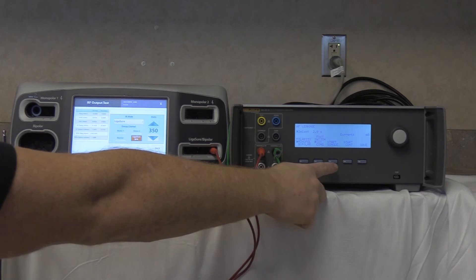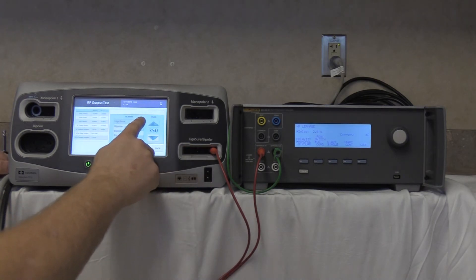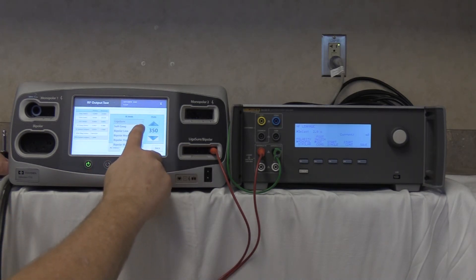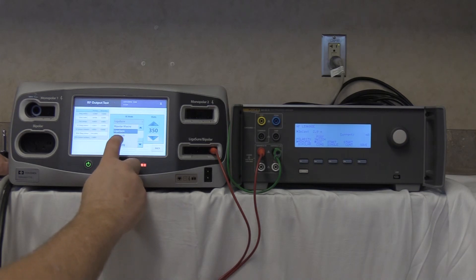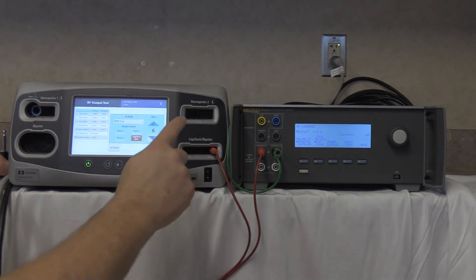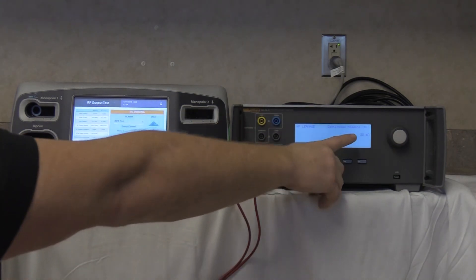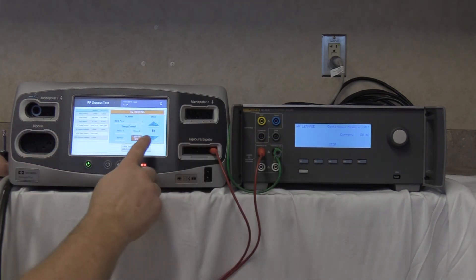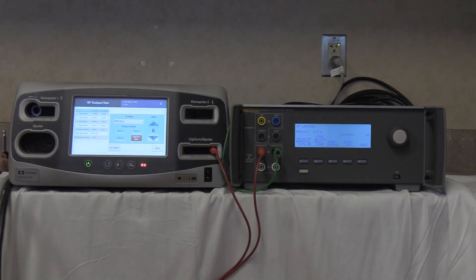Now connect to the right output line again and go to bipolar resection cut, effect 6. Start continuous and activate. Our reading is 55 milliamps. Deactivate, no-hold, and stop. 55 milliamps is well below the 100 milliamp threshold.